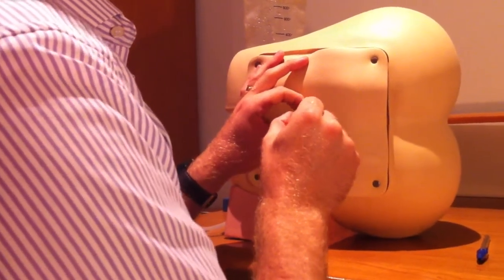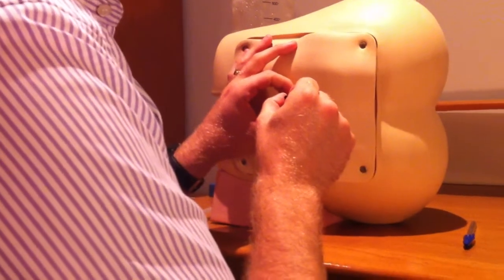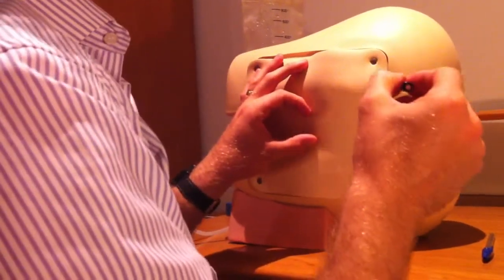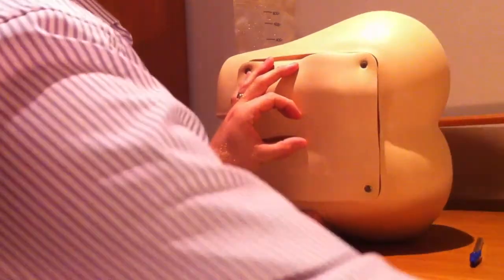If you don't make a small hole with a needle then it'll actually be very hard for an atraumatic needle to pierce the skin because of the way the tip is formulated.